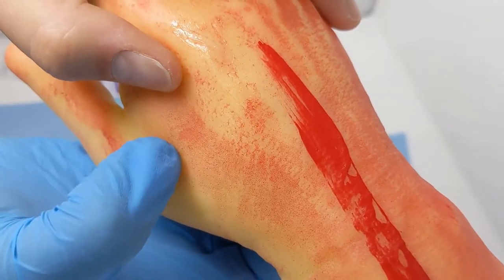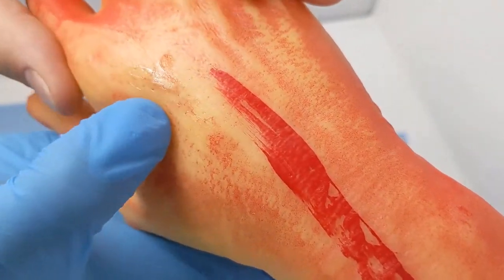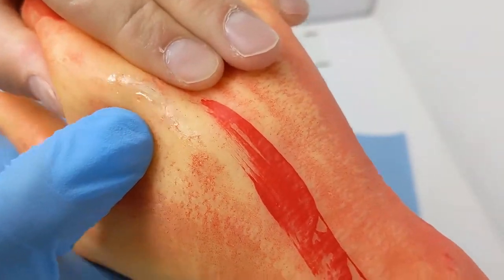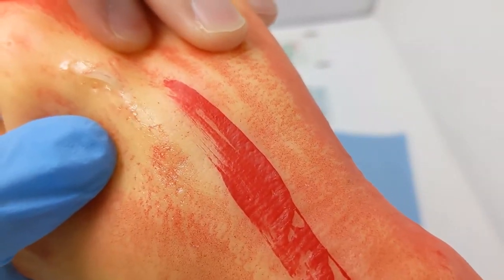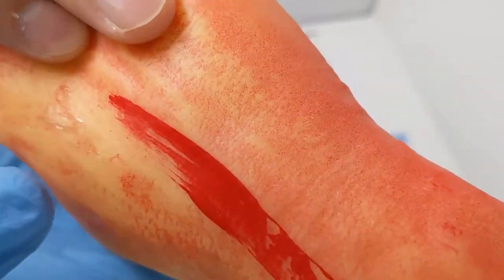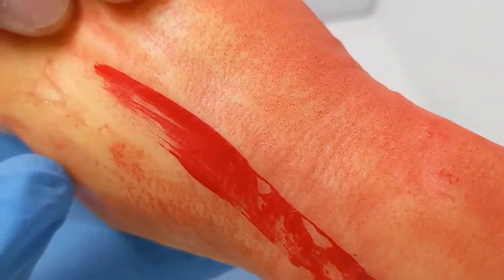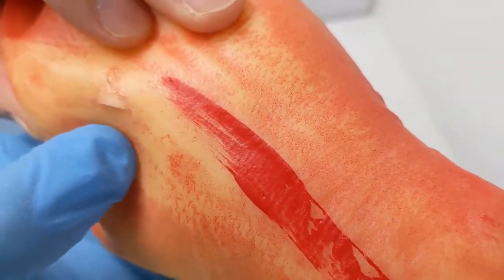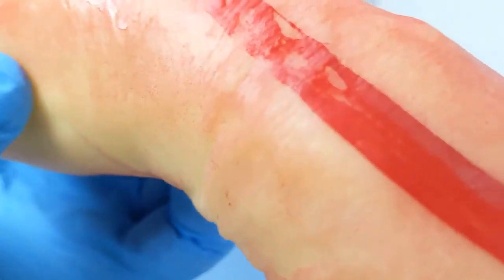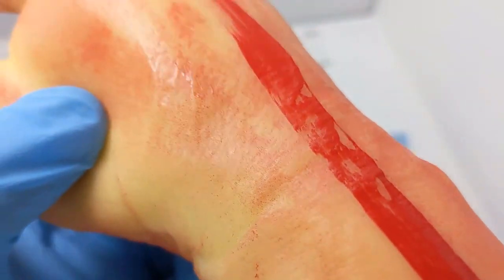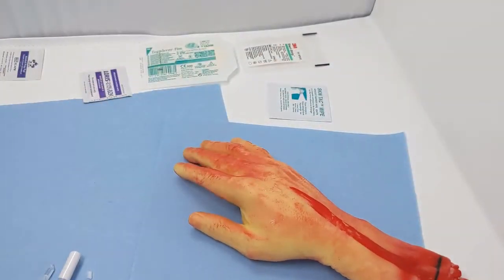Just some options for you. The liquid bandage is definitely cheaper. We see it used in a lot of kits in the States, but it's not actually holding at all from what I'm getting here. So that may be a deterrent to the purchase. Maybe if we leave it longer it will. I'll try it again here. But I'm not actually getting any good results with that. Whereas that liquid stitch, that's impeccable. That happened right away.